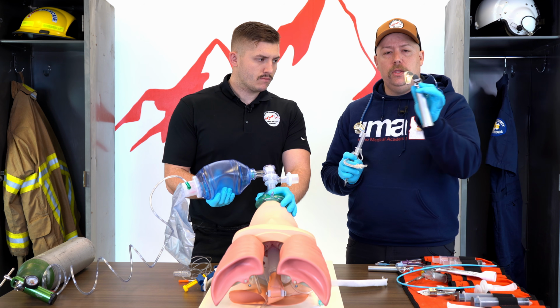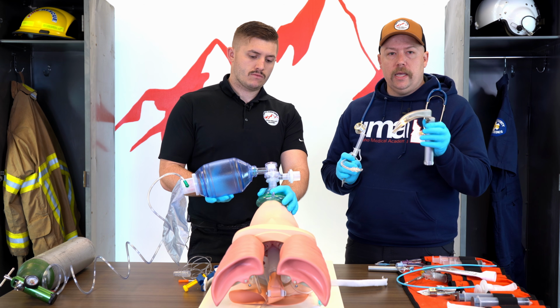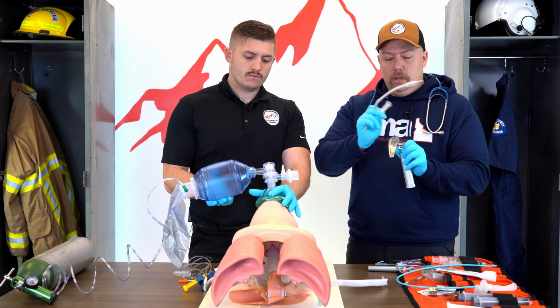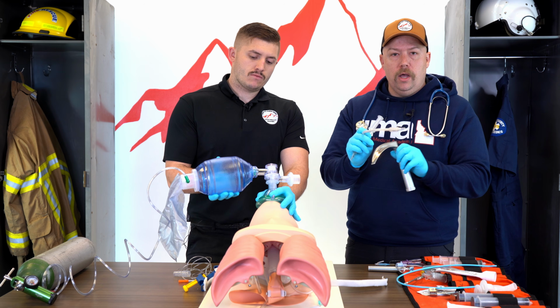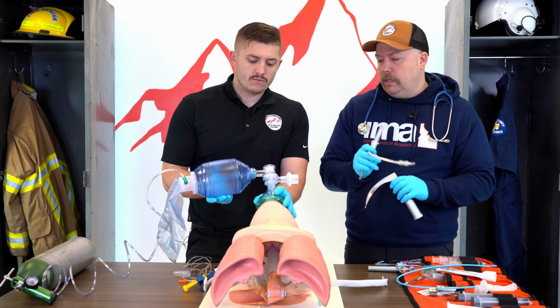One other thing to check, there should be a light on the intubation blade. We like to say it's light, tight, and bright. So when you close it, that light should turn on, and there shouldn't be much play in this. If there is play, then you're going to need to change out and get some different equipment.